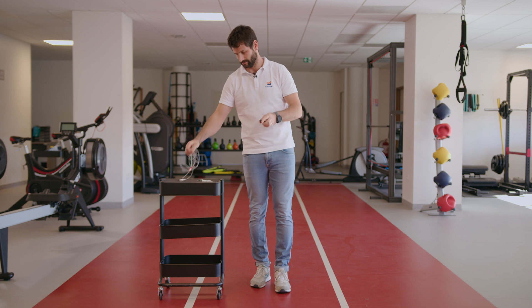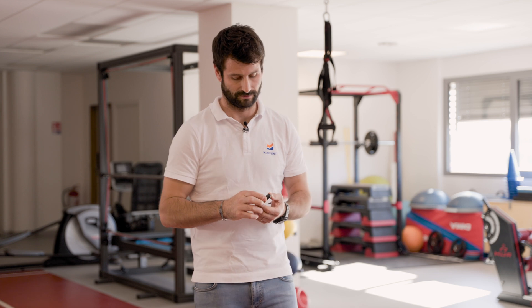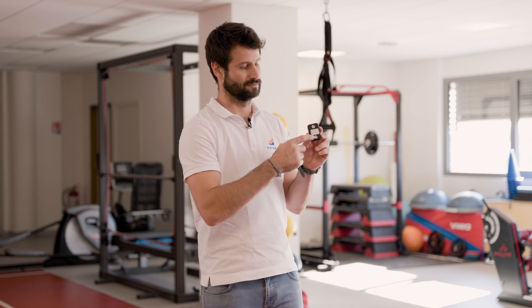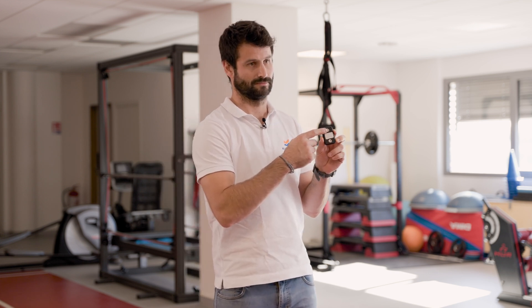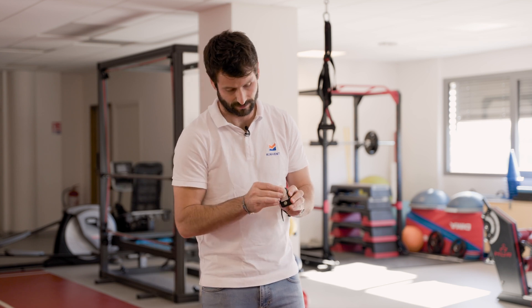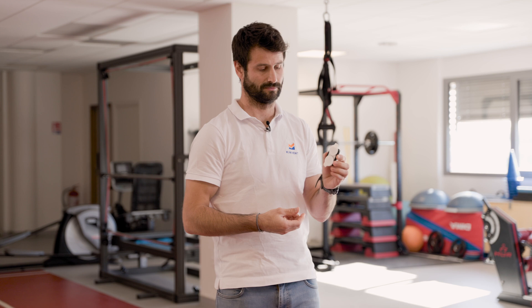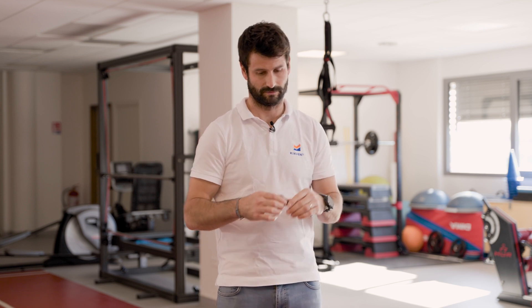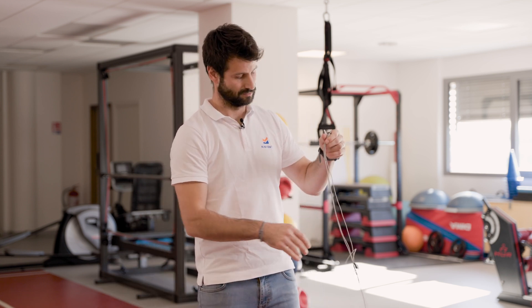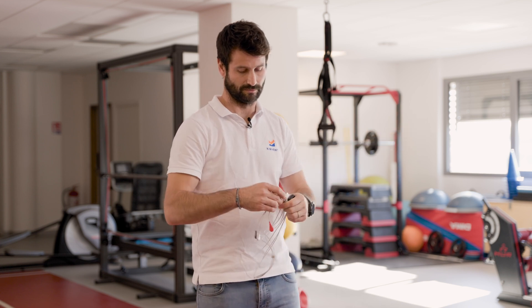The K-MyO is a surface electromyography or EMG sensor designed to capture the electrical activity of our muscles. We have a primary channel located at the back where we can affix the electrodes. This is the first channel, and we have the option to add a second channel, enabling monitoring of both agonist and antagonist muscles or engaging in targeted exercises.